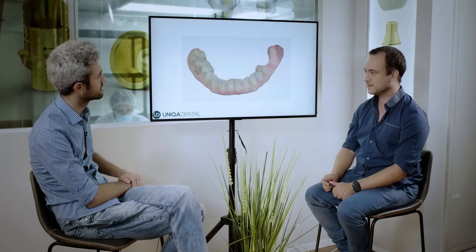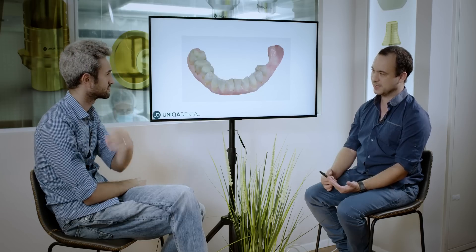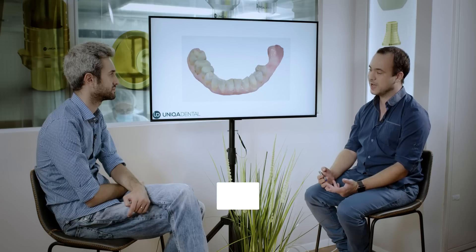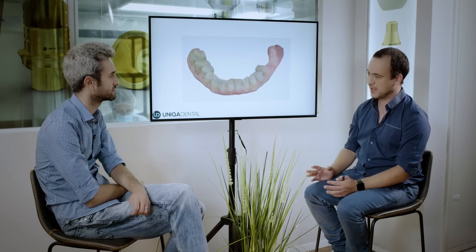This is the model of the jaw. Now that I know where I want to place the implants and which implants I can place in this position, I need to know how to place the implants. Because even in the same area I can place the implants in different angulations — I can move the implant a little bit forward, a little bit backwards. I have a little bit of game.